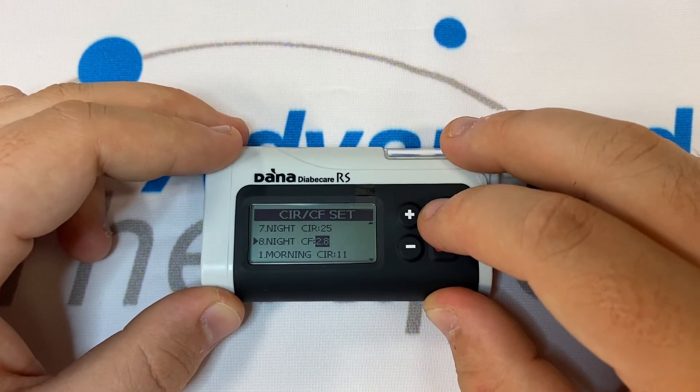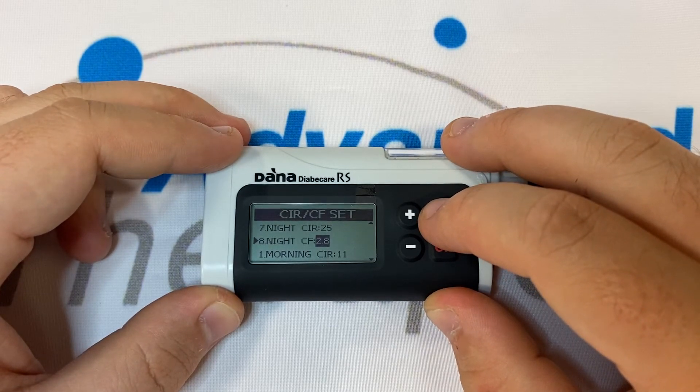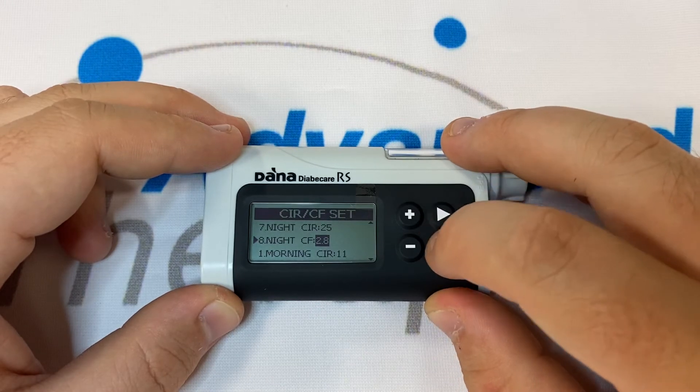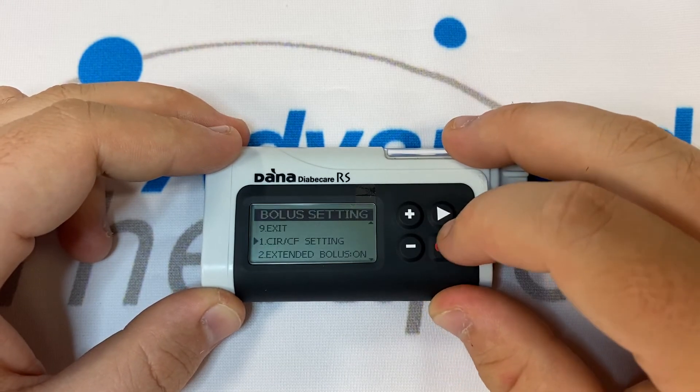Once you are happy that all of these are programmed in correctly and that the decimal points are in the correct place, press OK and OK again to save.